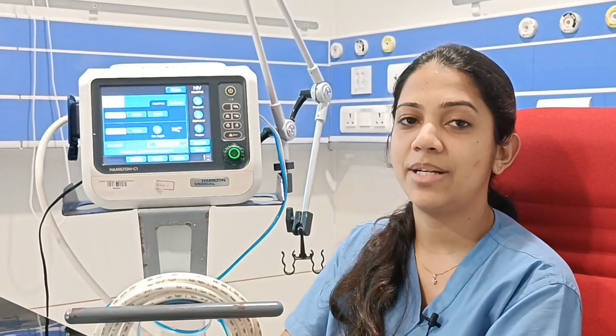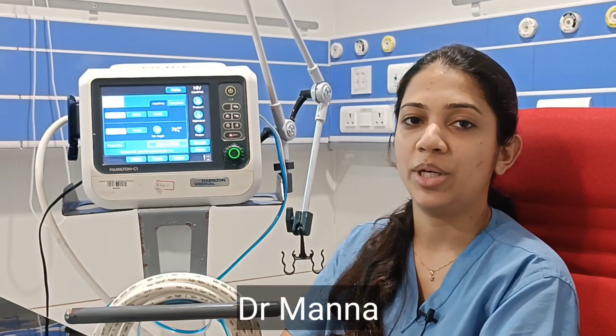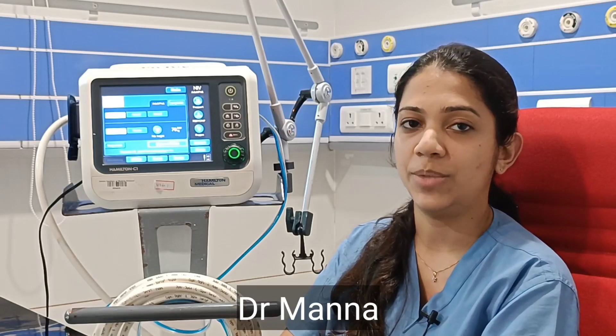Welcome to UTCM, the emergency medicine channel. Today we will be discussing about PCV mode, that is pressure control ventilation.